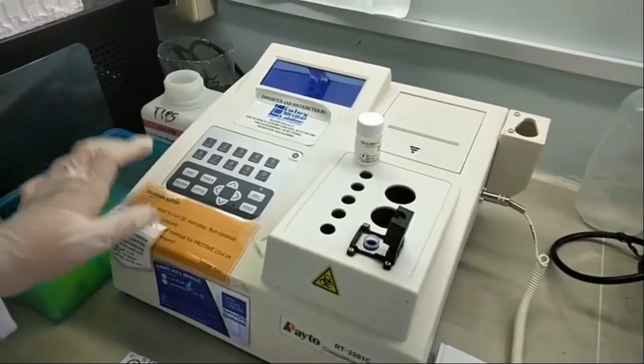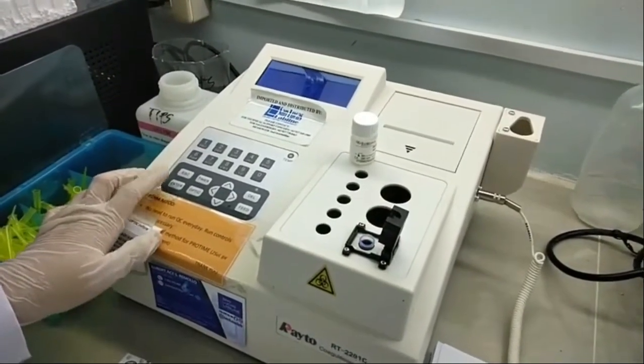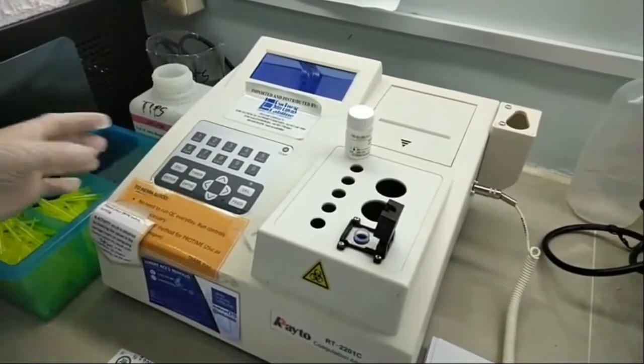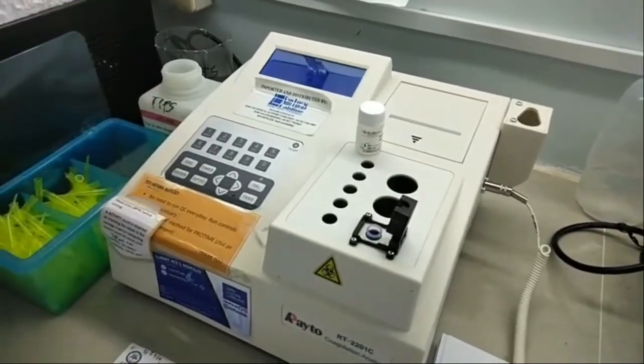Press number one key for test, then enter, followed by optic.